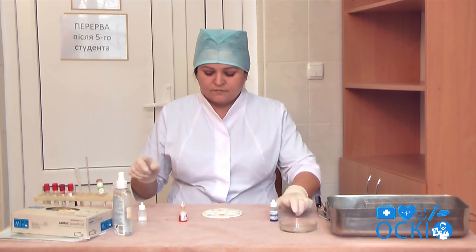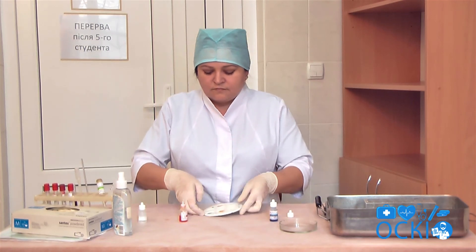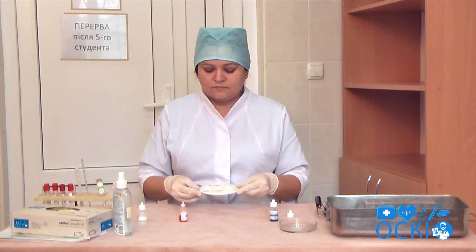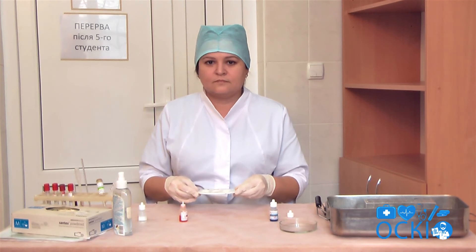Determine the time of registration of the agglutination reaction, which is 3 to 5 minutes.